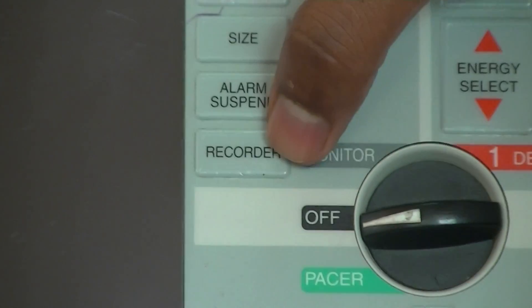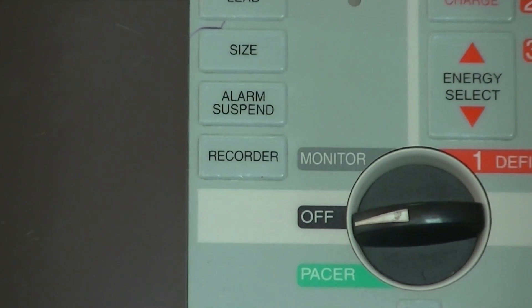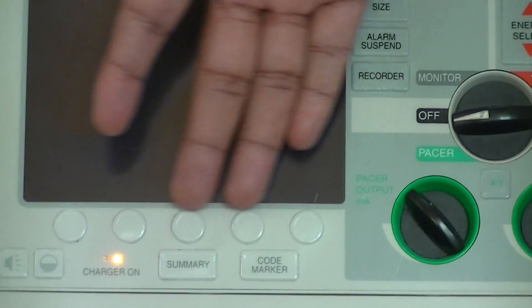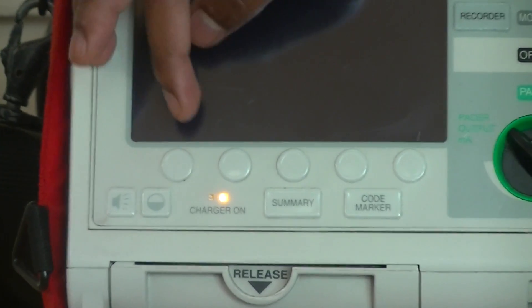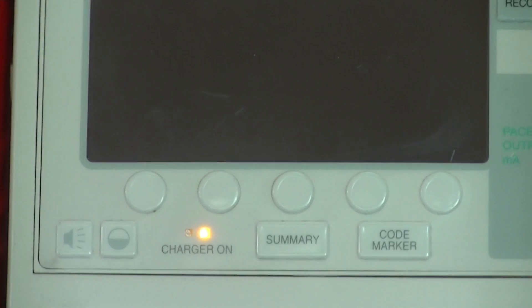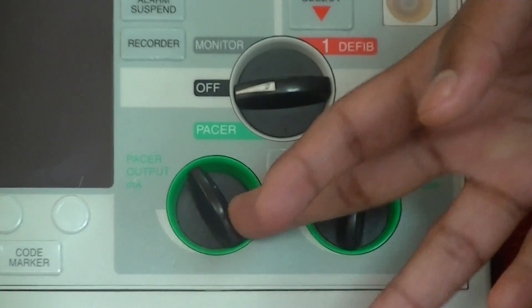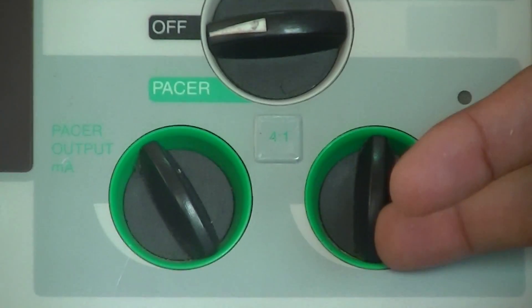The recorder button — when you want to get a printout of the ECG or a quality ECG, you can use this to get the printout. At the bottom, you can see 5 soft keys which will be used depending on what is required on screen. And these 2 green buttons will be used for pacing, where you can select your milliamps energy output and your pacer rate in pulses per minute.